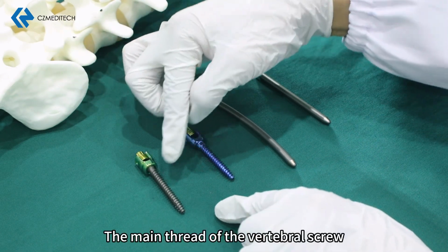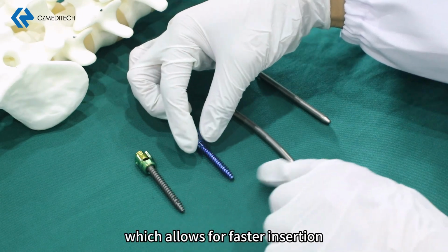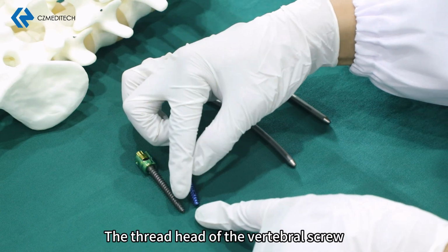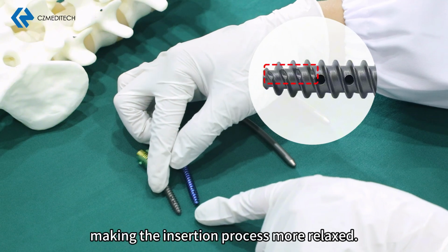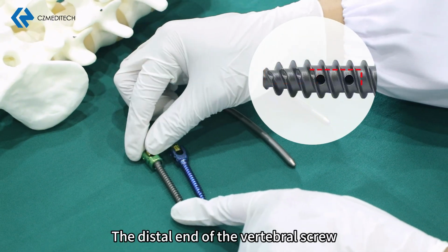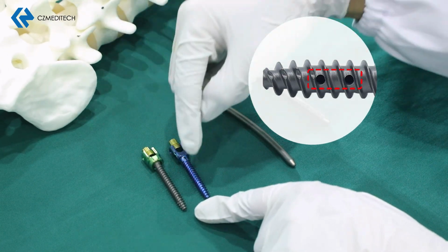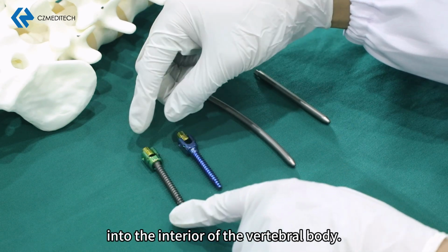The main thread of the vertebral screw is designed with a double helix, which allows for faster insertion into the vertebral body. The thread head of the vertebral screw is designed with symmetrical cutting edges, making the insertion process more relaxed. The distal end of the vertebral screw is evenly designed with 6 bone cement outlets, facilitating the injection of bone cement into the interior of the vertebral body.